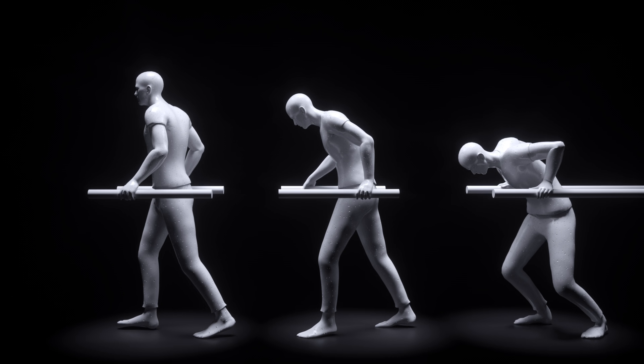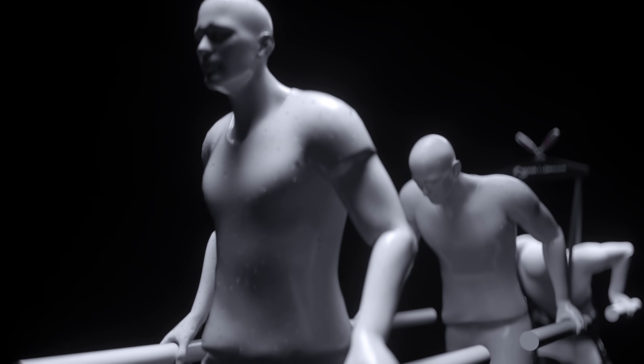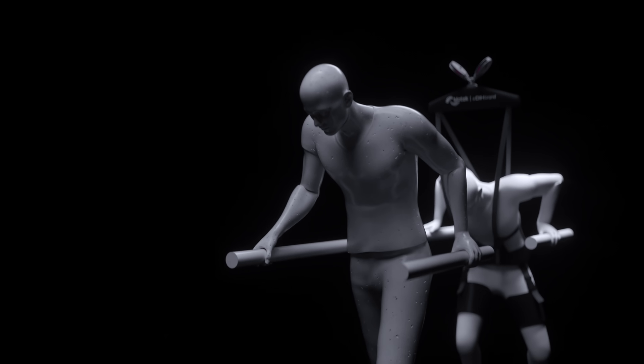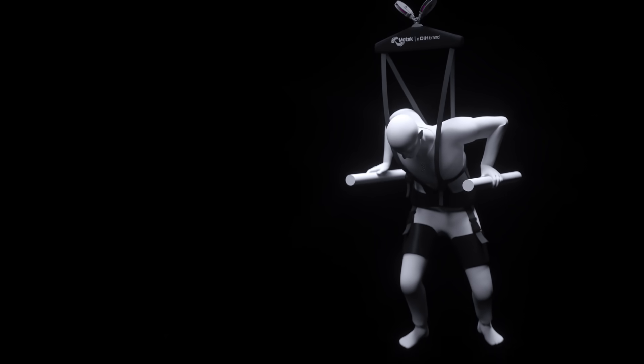For the longest time, assistive devices restricted the patient's freedom and variation of movement or only gave vertical unloading support.